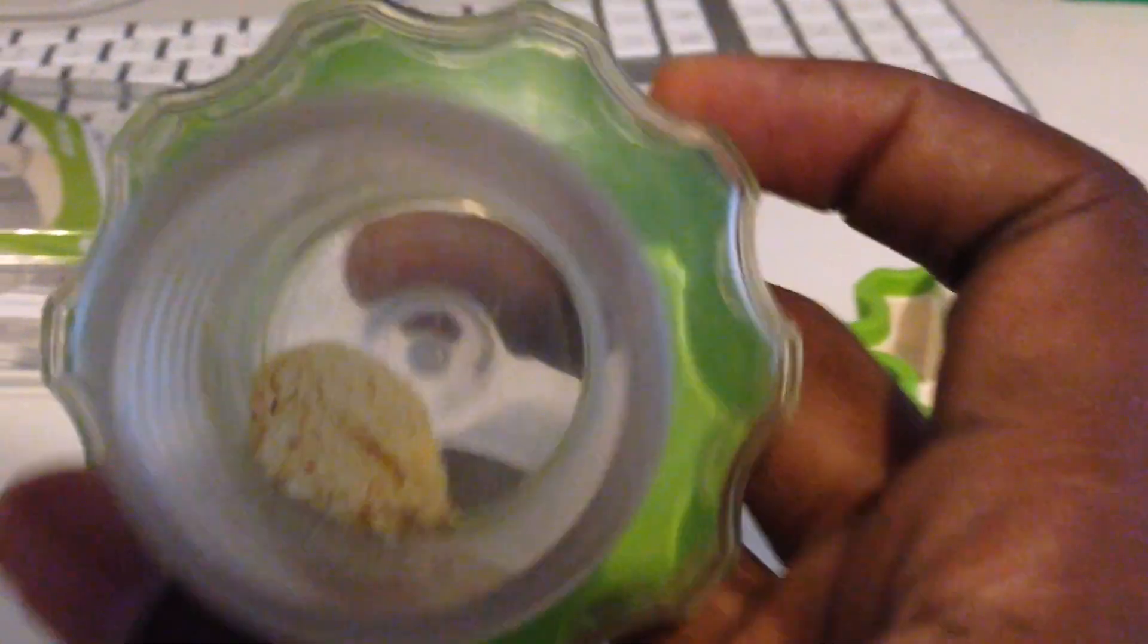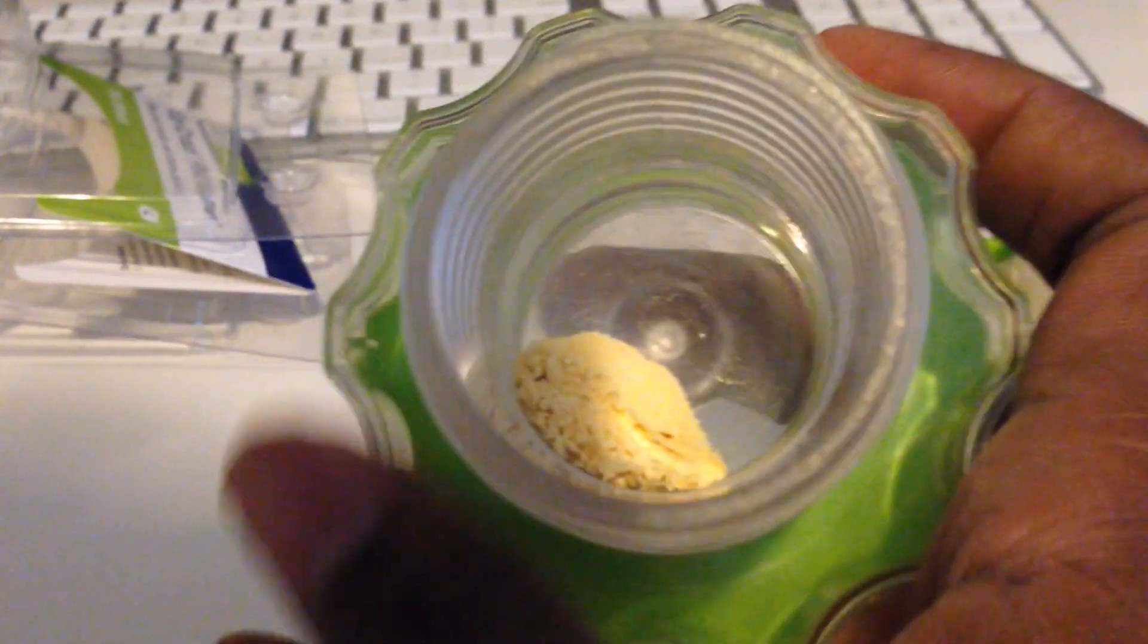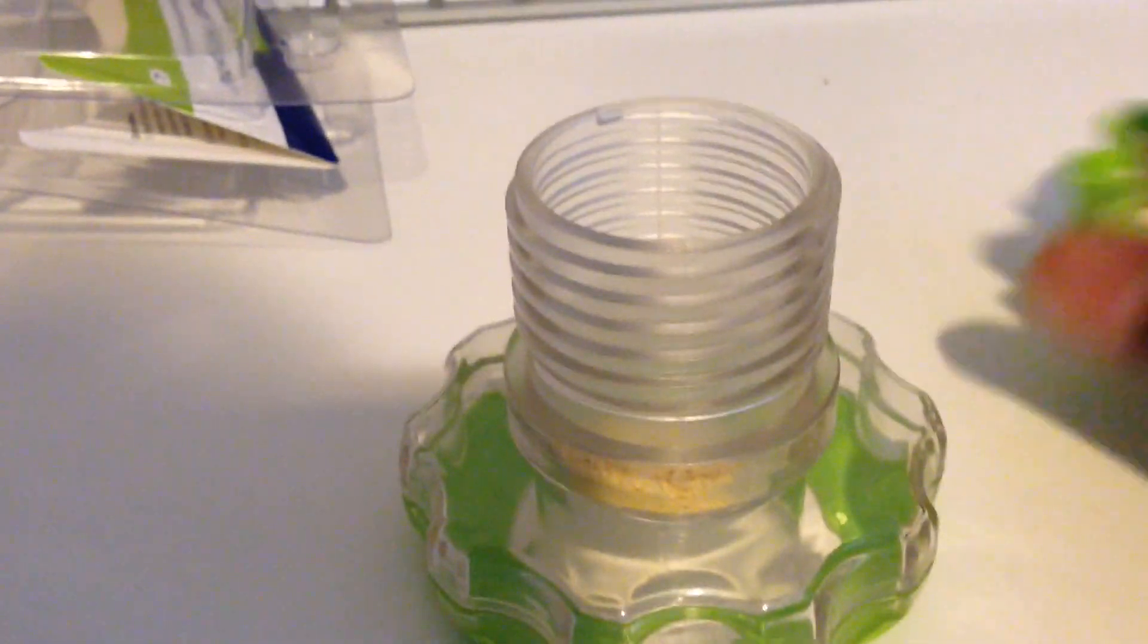Oh yeah, you saw that pill. It's literally powdered now. So I'm going to take this with my breakfast and get through the rest of my day.